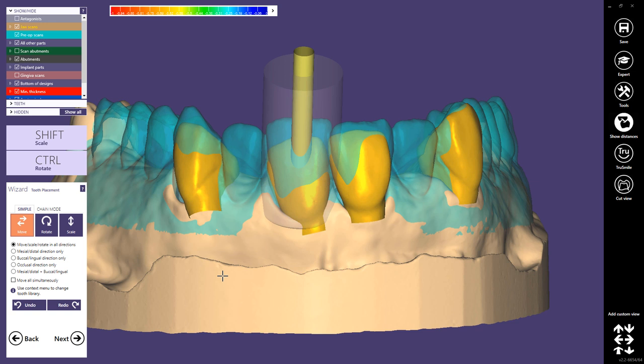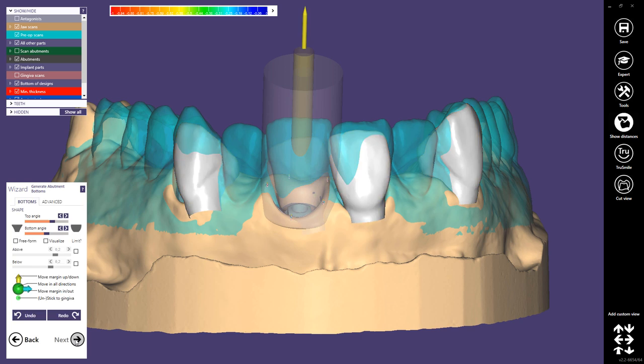In this step we define the cement gap settings, using the correct material, so there's no need to do more operations. For telescopic crowns, that's the only job where I don't use any tooth placement. I did many telescopic crowns in a German lab in the past, and usually you just try to design them as quickly as possible. As long as you are not creating anatomical parts on your telescopic crowns, you really don't need tooth placement, so I simply skip this step.